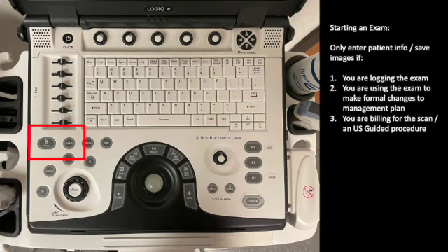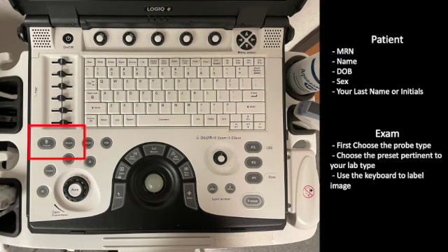Using these two buttons on the left is how you're going to set up your patient in your exam. Starting with the patient button will pull up a menu, and in that menu you can fill out the MRN of the patient, their name, first and last, date of birth, their sex, and then if you remember, try to include your last name or your initials in the performing blank there. If not, you can always just type this in as a label somewhere on the exam, just so that we know who conducted the ultrasound.